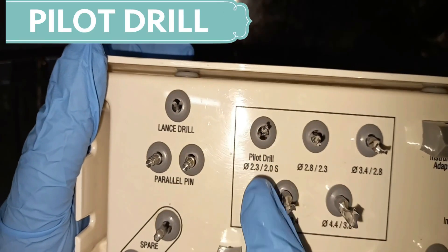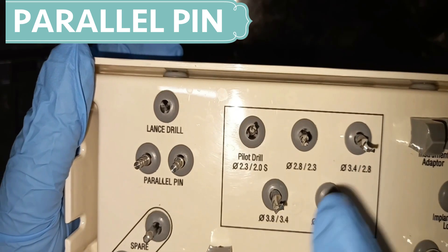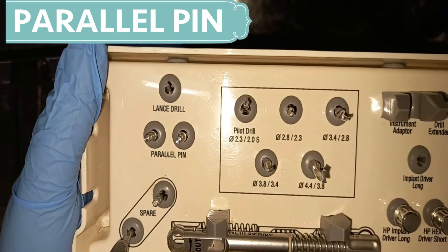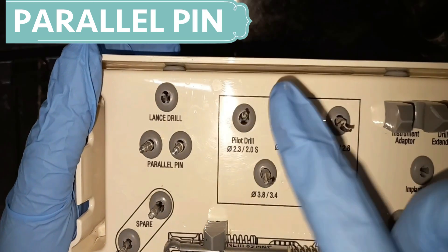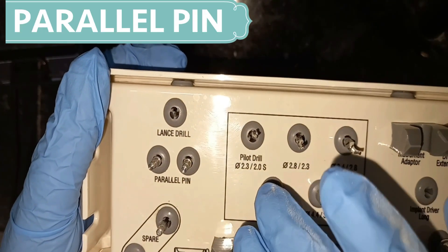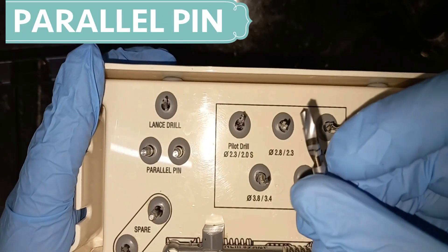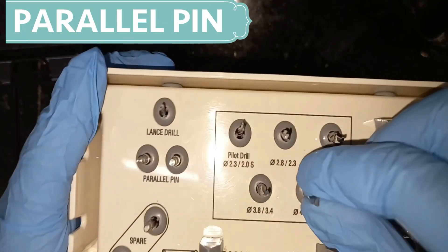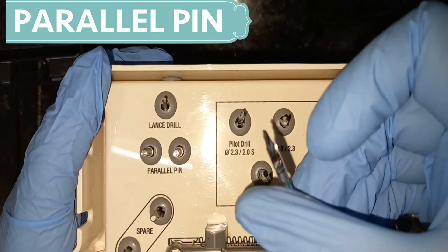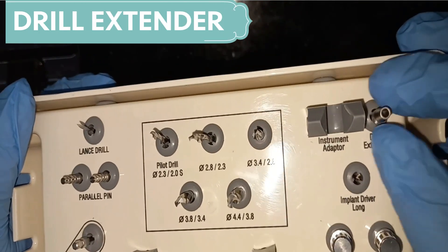Then we have pilot drills. There are five types of pilot drills and they are used to deepen and direct the drilling sequence. As you can see, we have five types of drills available in sequence: 2.3, 2.8, 3.4, 3.8, and 4.4. According to the implant size or length, you will prepare the osteotomy site with the help of these five types of pilot drill.